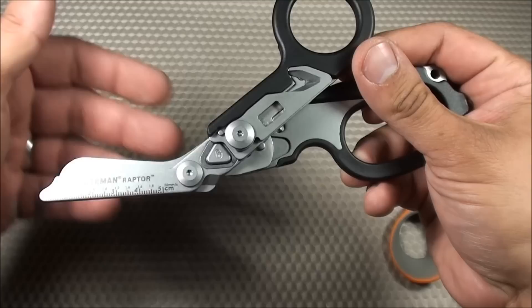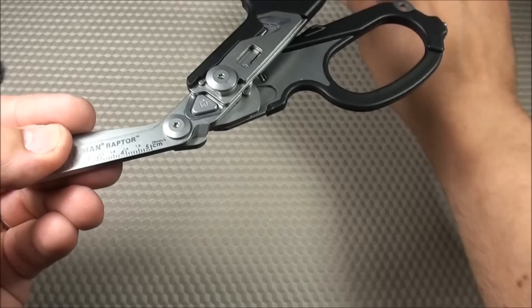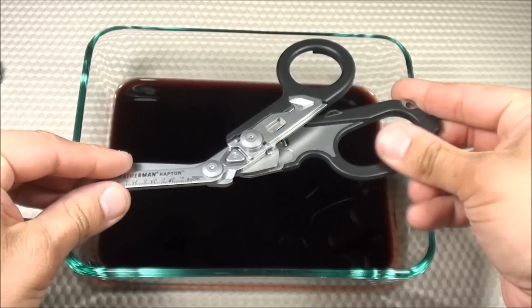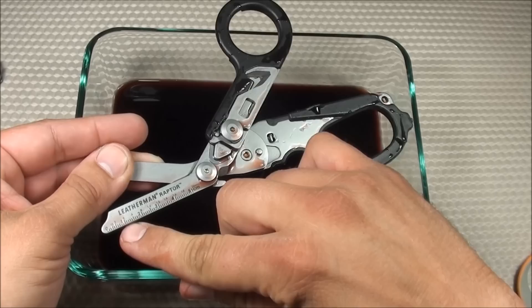The last con is that when dealing with blood, there are all these little nooks and crannies on here. While it is cleanable, you've definitely got to notice that you're going to have to clean it a little bit more thoroughly. If this thing was covered in blood, you'd want to make sure it's nice and clean — you'd have to fold out a lot of things to make sure all that blood is taken care of. And maybe over time it's going to start wearing down on some of the ink.